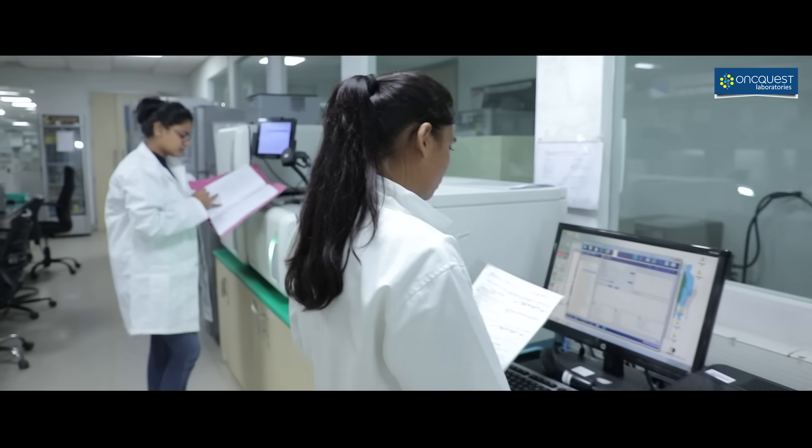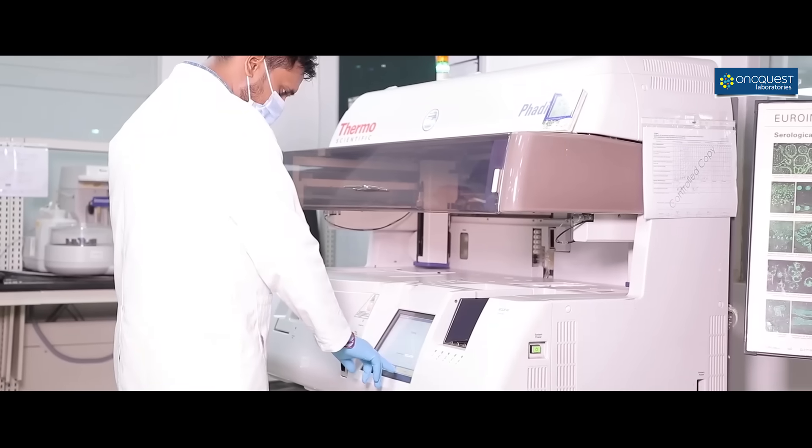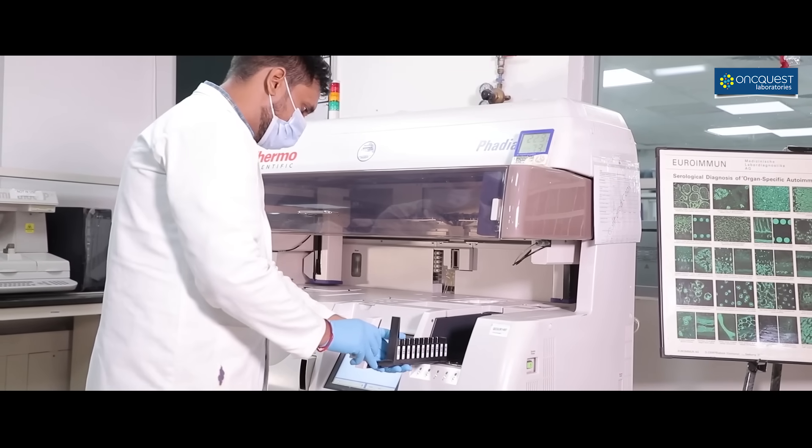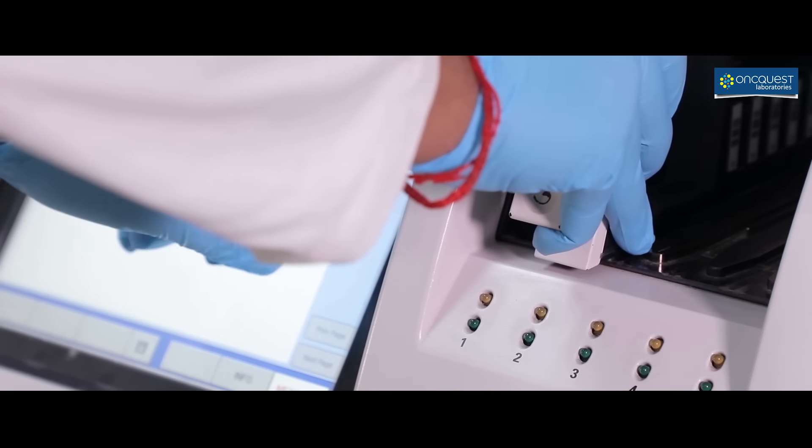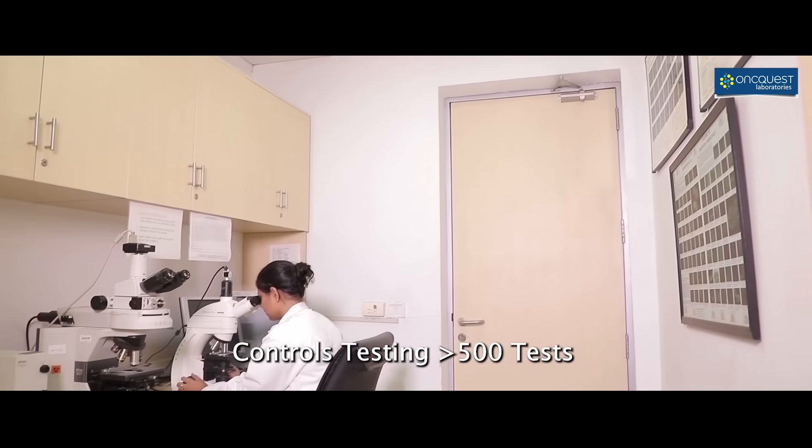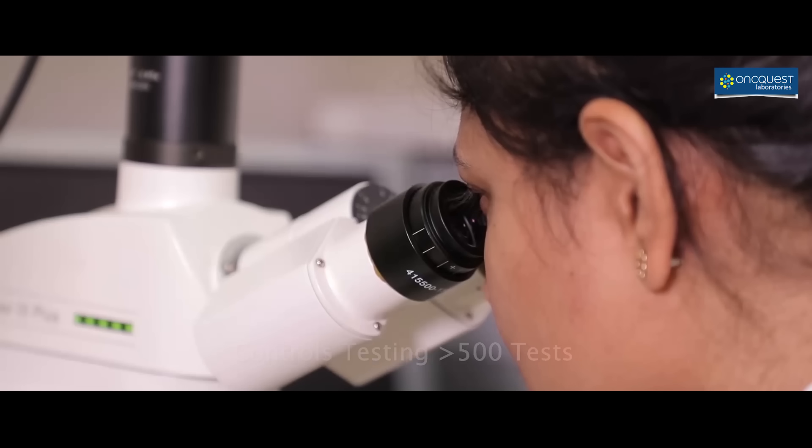The department is well equipped and capable of handling a plethora of diagnostic services over a broad and dynamic range, such as bacteriology, mycobacteriology, mycology, parasitology, serology, immunology, hospital infection control, and biomedical waste management. Quality controls more than 500 tests per day.